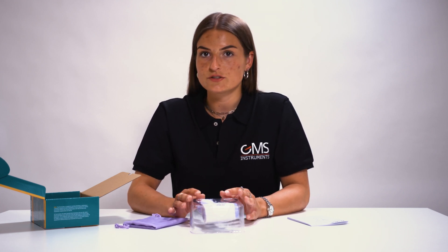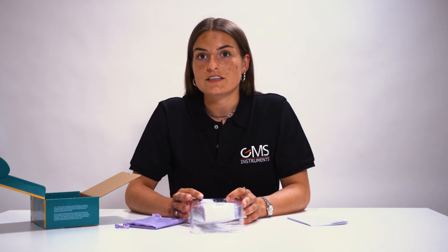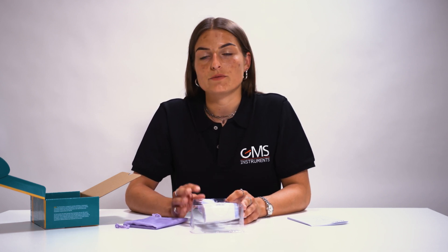The temperature range of this device is between 32 degrees Celsius and 42.5 degrees Celsius. Also nice to know is that you can set an alarm, which is set at a specific temperature. When the measured temperature exceeds this set temperature, it will go off. This is good so that you don't have to check the screen all the time.